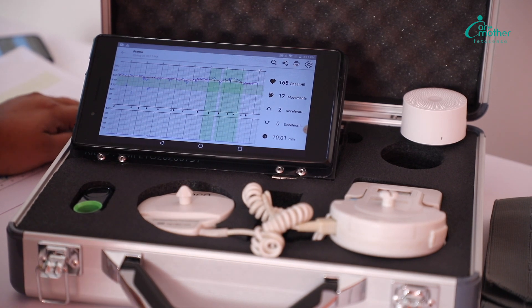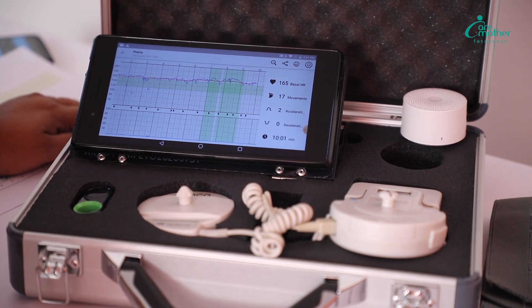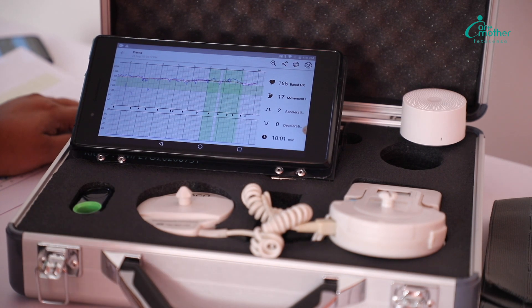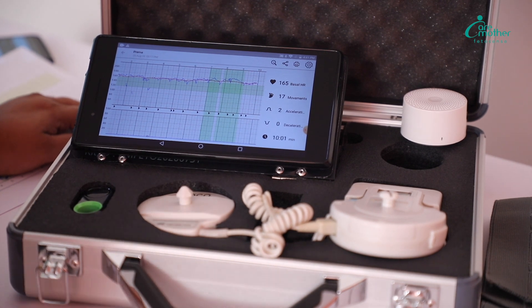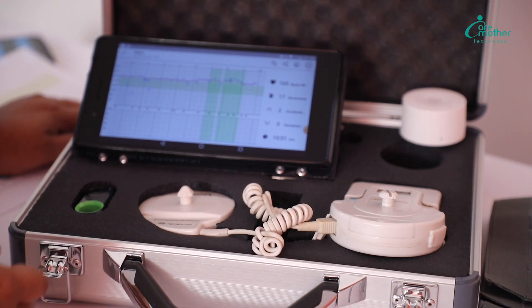And with data storage, if there are any cases of medical legal which come in the later future, you will be able to access the data from here.